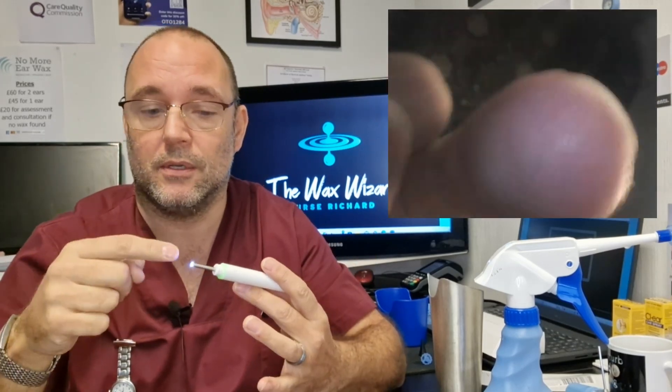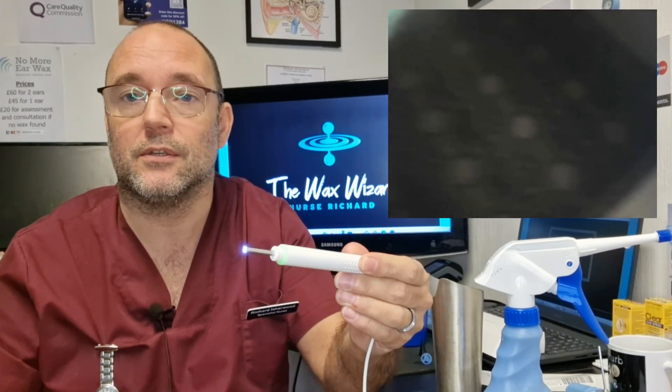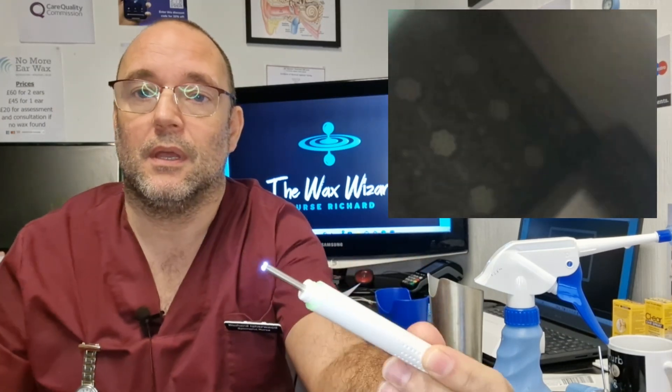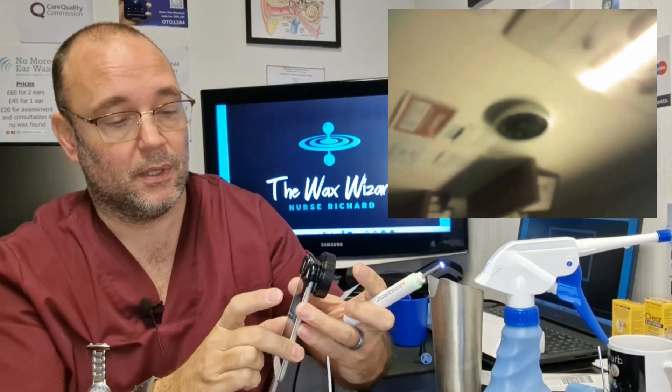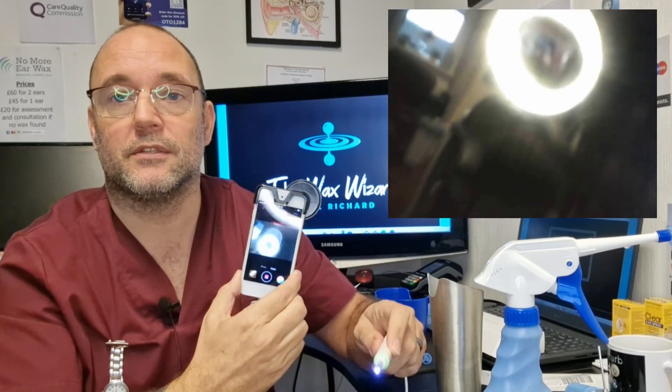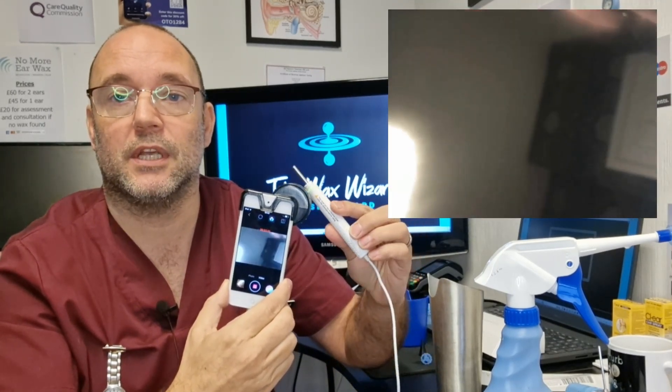What's good about these is - I'll put the image it's casting on the other side of me there. You get these LED lights on it, that's the camera, and you connect that and just download a simple app from the App Store and it casts it onto your smartphone or smart device.